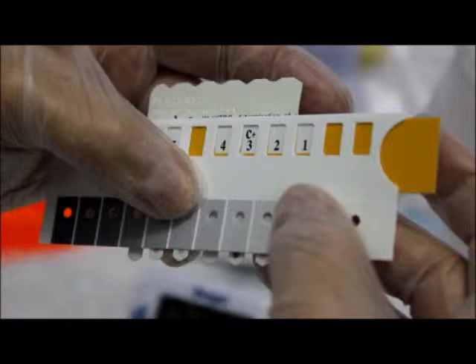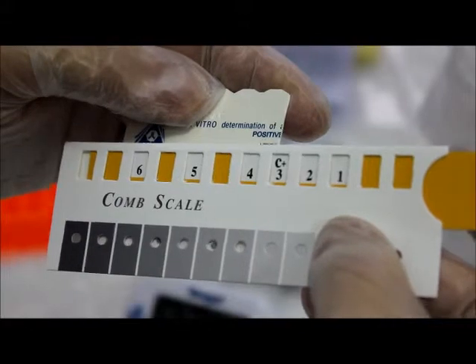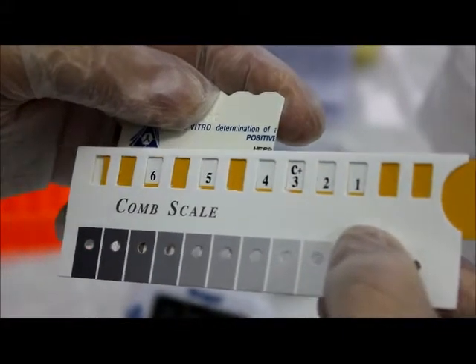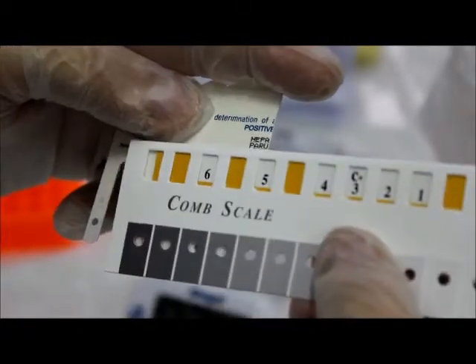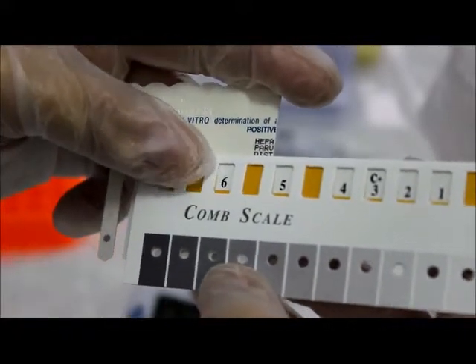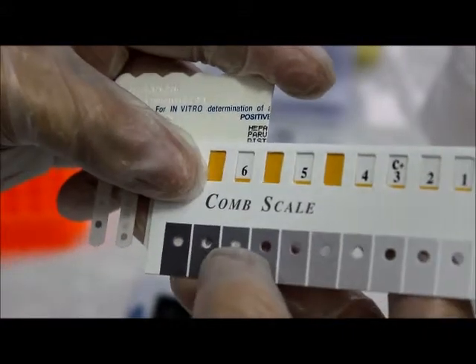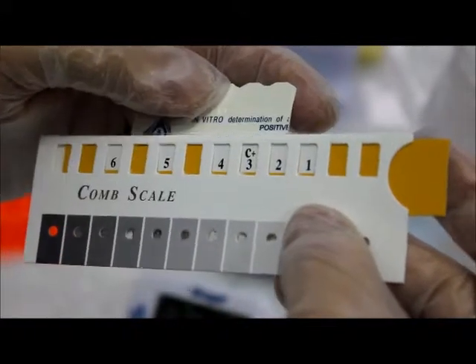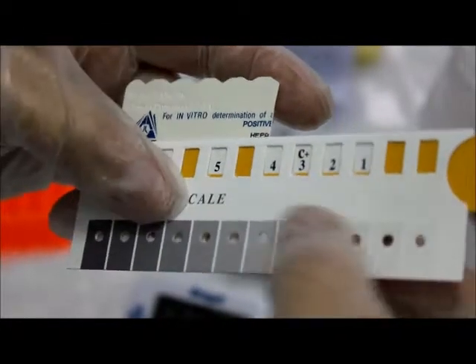While holding the slide, find the tone of purple gray on the comb scale that most closely matches the desired test result spot, one of the lower spots. In other words, compare the color tone to the test spot with the positive reference spot on the comb scale. The comb scale S value is the number that appears in the yellow window corresponding to the color tone when the positive reference color is calibrated to S3. Test numbers will range from S0 to S6.